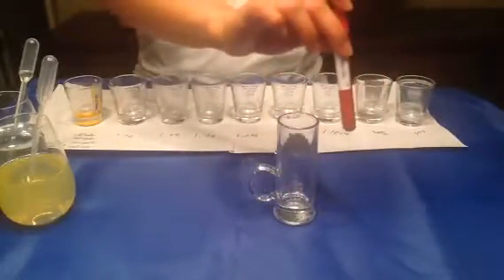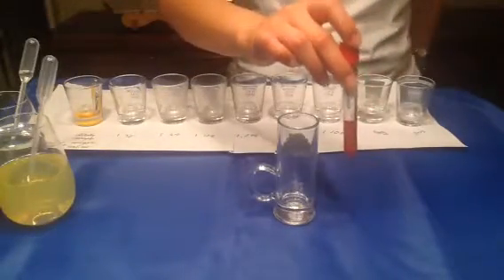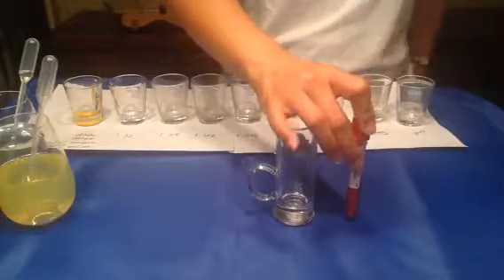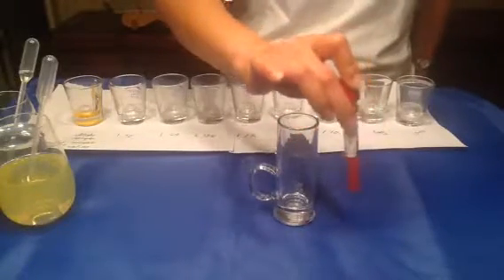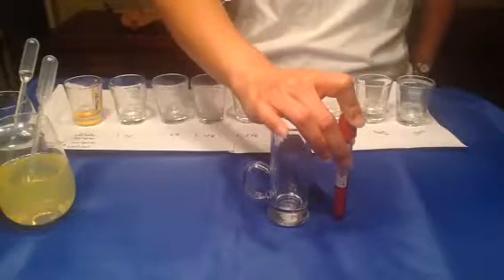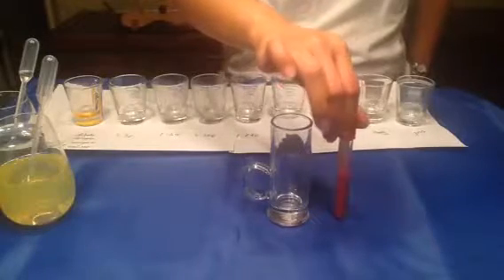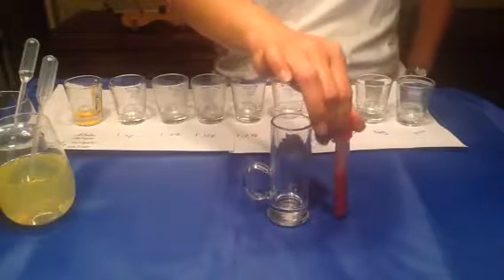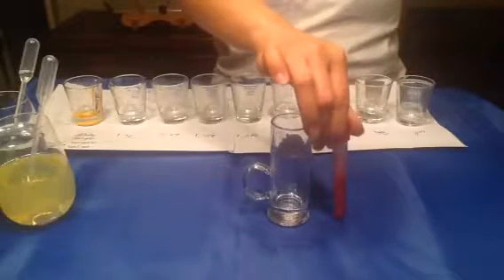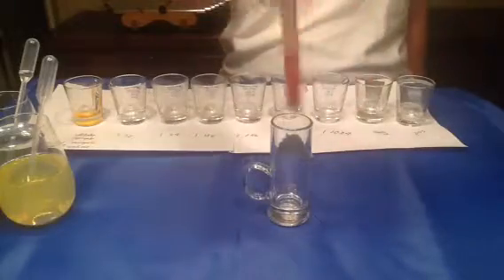We collect it in the red top tubes, and you have to keep it warm at 37 degrees Celsius at all times until you separate the patient's red cells from plasma. So if you don't centrifuge it immediately since you receive the specimen, you have to keep it in a water bath. Or if you keep it in the refrigerator, you have to make sure that you pre-warm it at 37 degrees before you centrifuge.